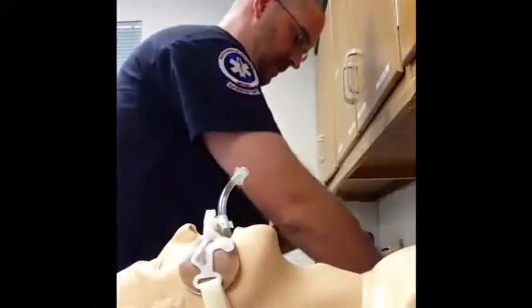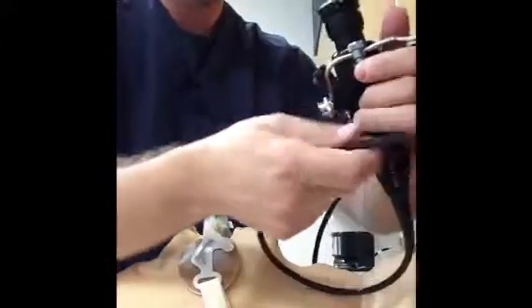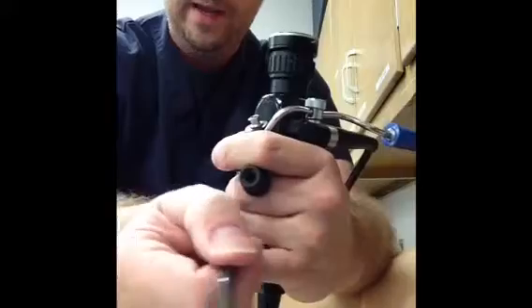Some other things you can do with this: you can hook suction up to it. You want to go ahead and close this off — you can see the little connector here. You connect your suction here, and then I have a little button right here and I can actually suction the airway. So let's say we have some secretions, or perhaps I'm going in for a mucus plug — I can go ahead and instill some mucomist in there, break that mucus plug up, and then go ahead and suction stuff out or suction to clear my field so I can get a good view.